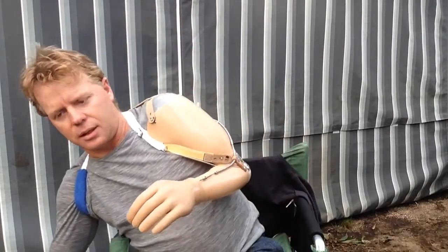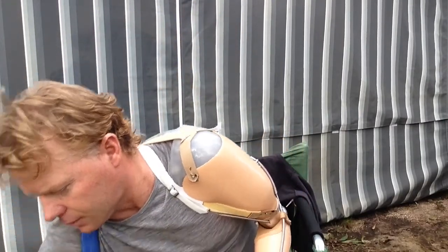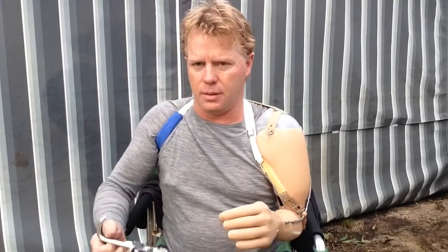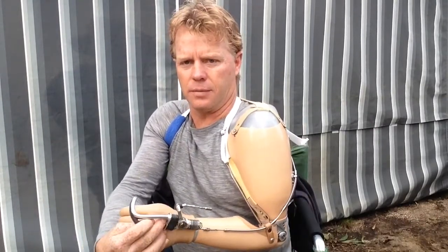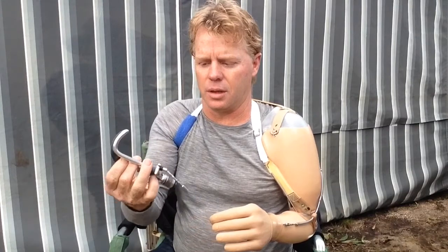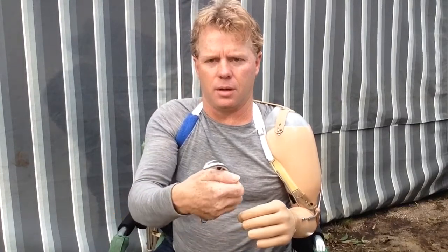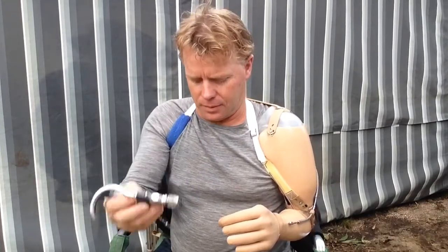It takes me a little while. That's the hook — goes on here in place of the hand. And they tell me it actually has more uses than the hand because it's so neat on the end — you can pick up nearly anything. Yet to learn how to use that one. A long way to go.